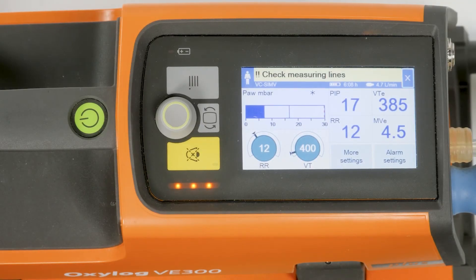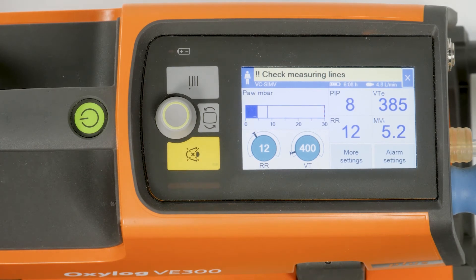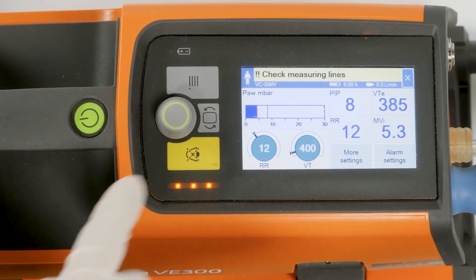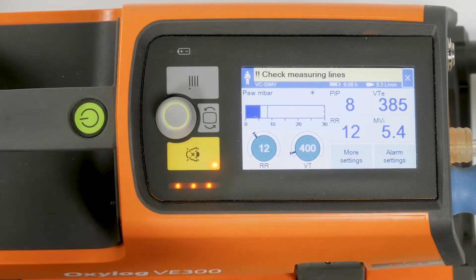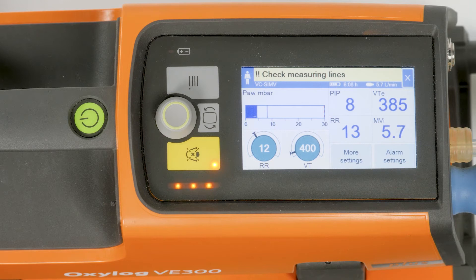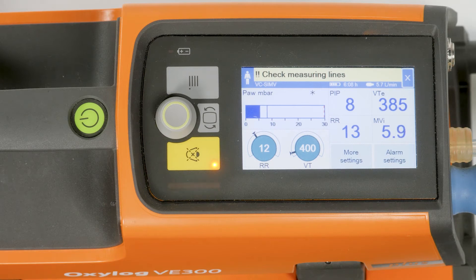To silence acoustic alarm signals, press the alarm silence key. The alarm indicator remains active and all current acoustic alarm signals are silenced for about two minutes. The LED in the yellow key field remains lit during this time.